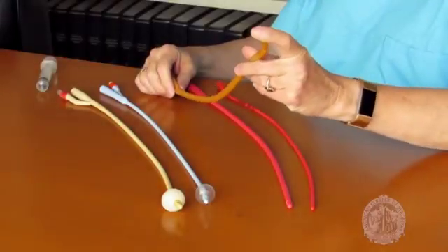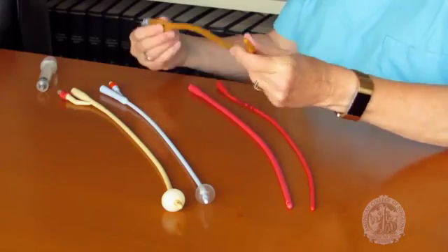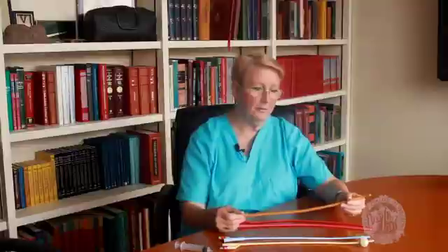Other forms of indwelling catheters also exist. The coudé catheter is a catheter with a bulbous tip and a curved end, and it's used for patients who have urethral obstructions, such as from benign prostatic hypertrophy. It's placed using a bit of pressure, but the principle of placing it is the same — it has a balloon and it's indwelling.